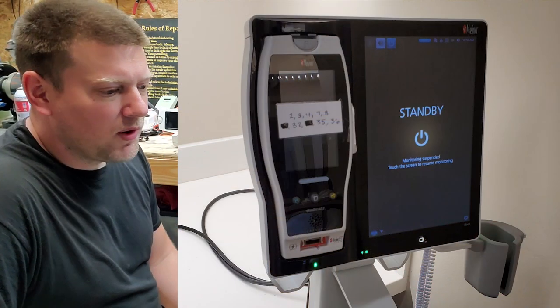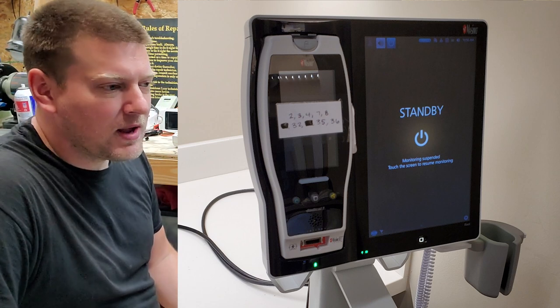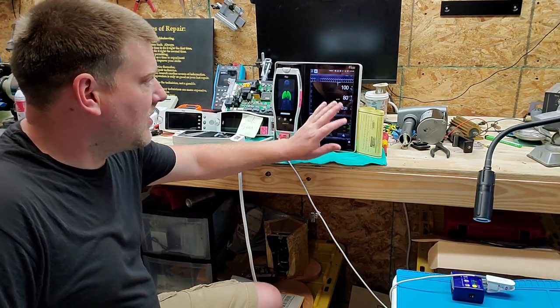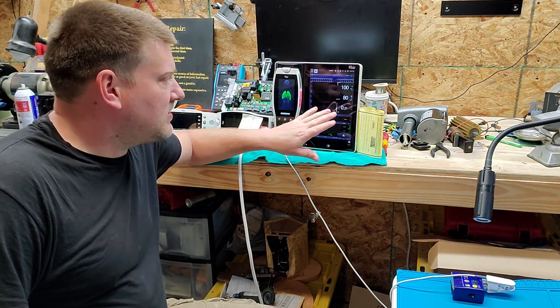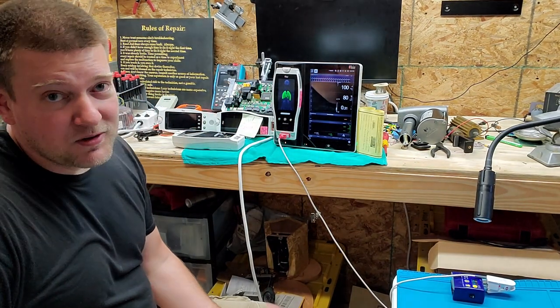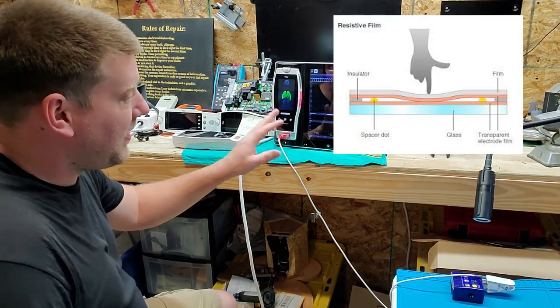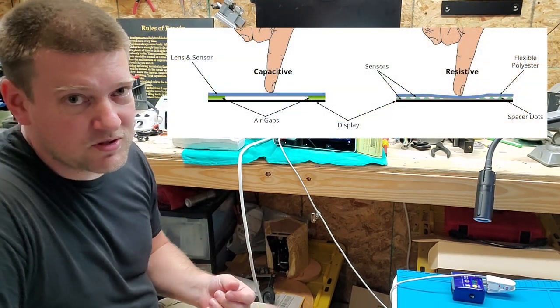I was walking through a ward and I saw one of these systems sitting off to the side. One of the nurses had taped a note right on the face of the touchscreen of the Radical 7. The Radical 7s and the Root base have capacitive touchscreens, and capacitive touchscreens don't like anything on them — they need to be very clean. Resistive touchscreens are more lenient to that, but they get damaged by impacts on the front. Capacitive touchscreens get confused by contamination on the front of the screen.